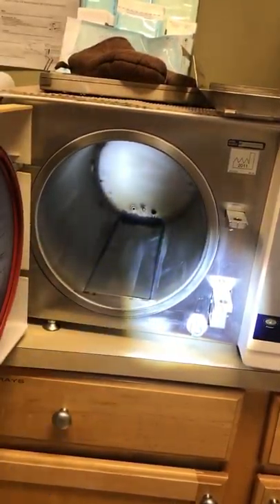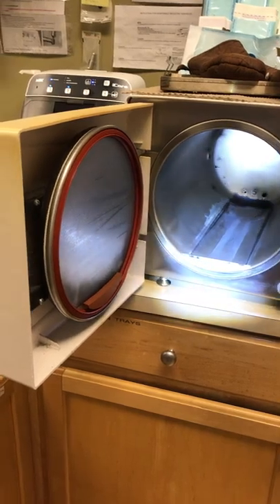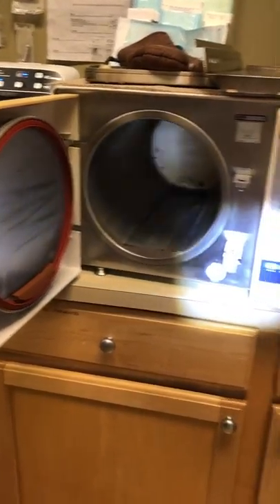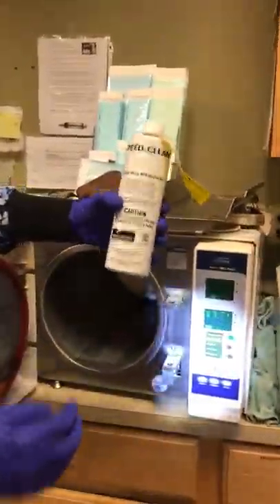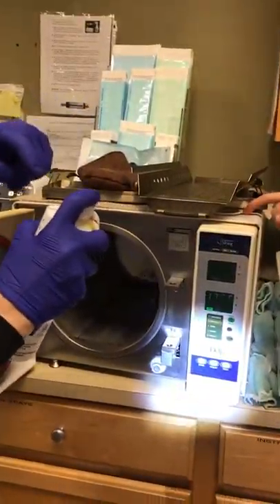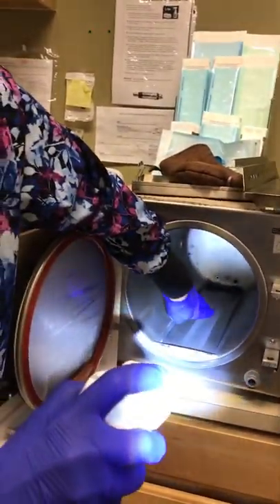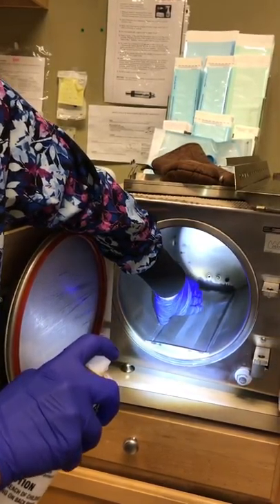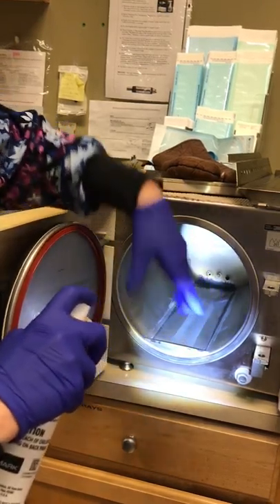What do you scrub it with? You have your cleaner. You can use any kind of cleaner as long as it doesn't have bleach. The cleaner is Speed Clean — you take one ounce into the cool chamber, into here. Pour the one ounce into the cool chamber. Don't pour it into the hot chamber, because it'll burn it off.